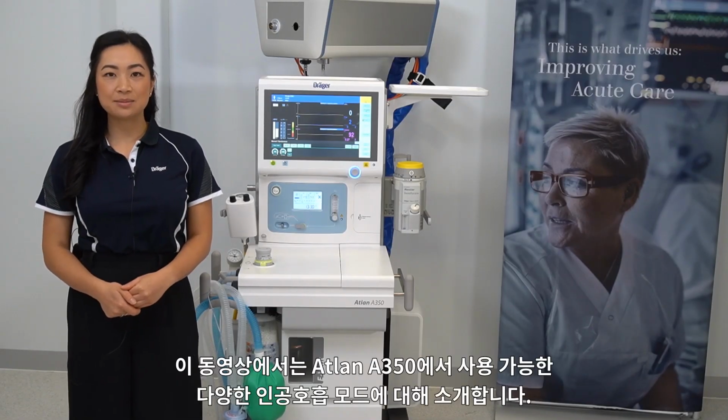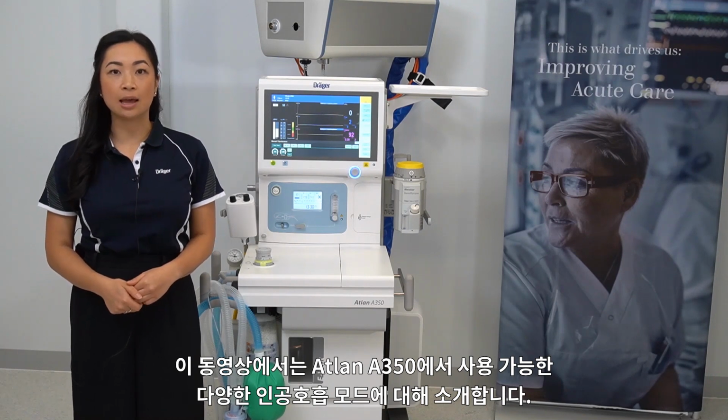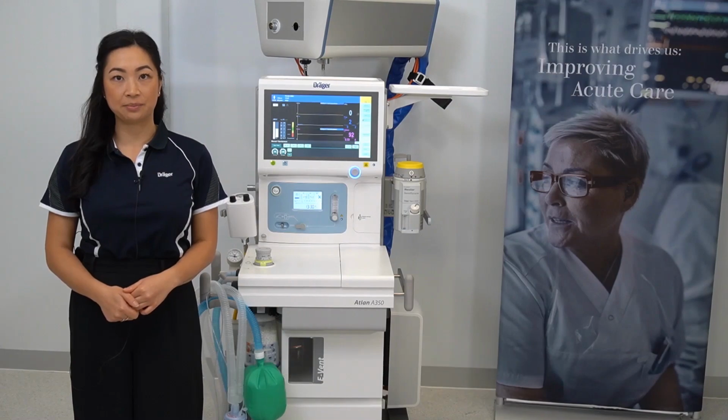Hello, my name is Samantha, and in this video I'll be outlining the various ventilation modes available on the Atlan A350.